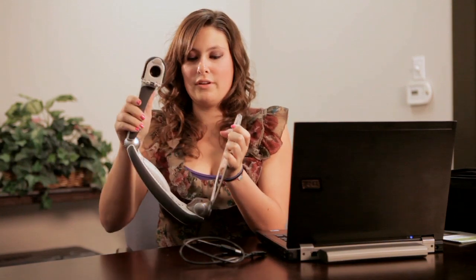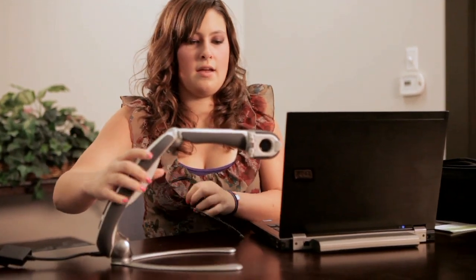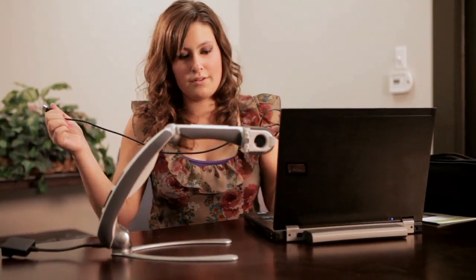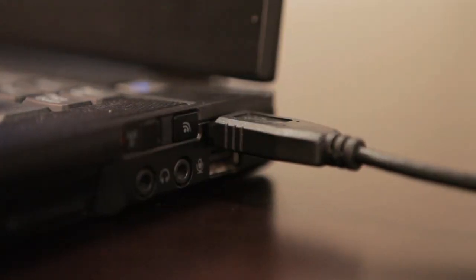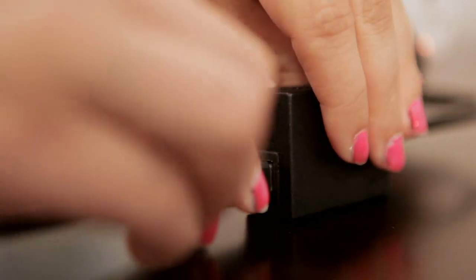To turn on the Transformer, all you have to do is pull it open, and you simply connect it with the cord that hooks up to your USB port. It takes about a couple seconds to warm up and connect to the computer.